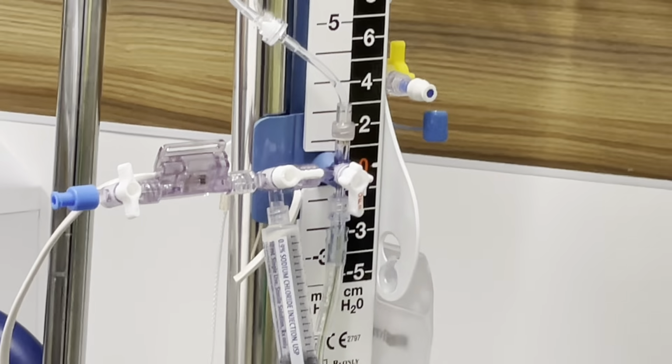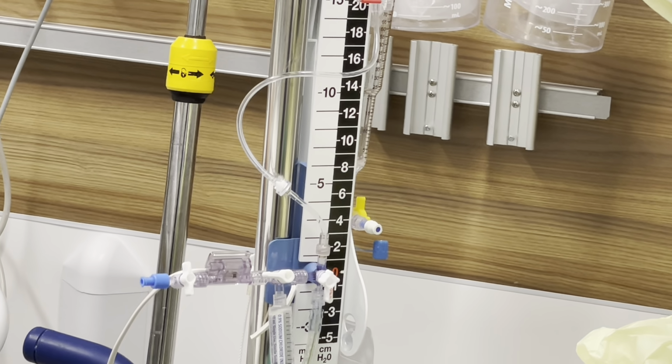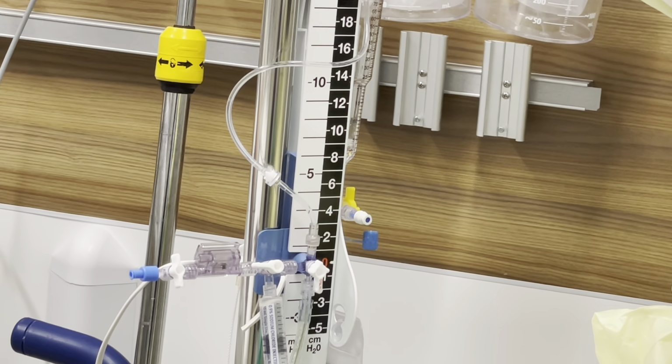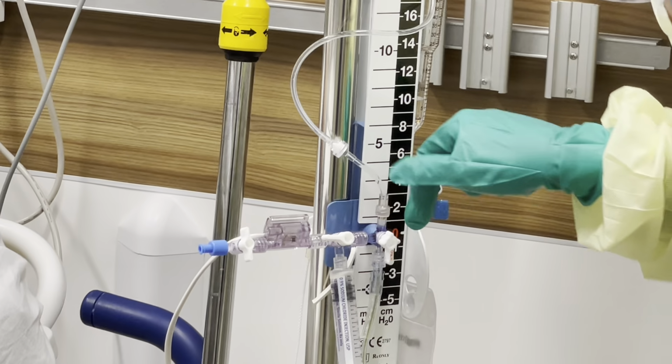So now we're going to go to the drain system, we're going to flush, and you're going to see all the little air bubbles come out, and that's normal. Sometimes you need to pulsate. Sometimes if you have little bubbles in there, you can flick it, or just pulsate. And we're going to try to make sure that we get all our little bubbles out. This isn't sterile over here, but we're not really using that hand again. Okay, now we're going to turn it back off.